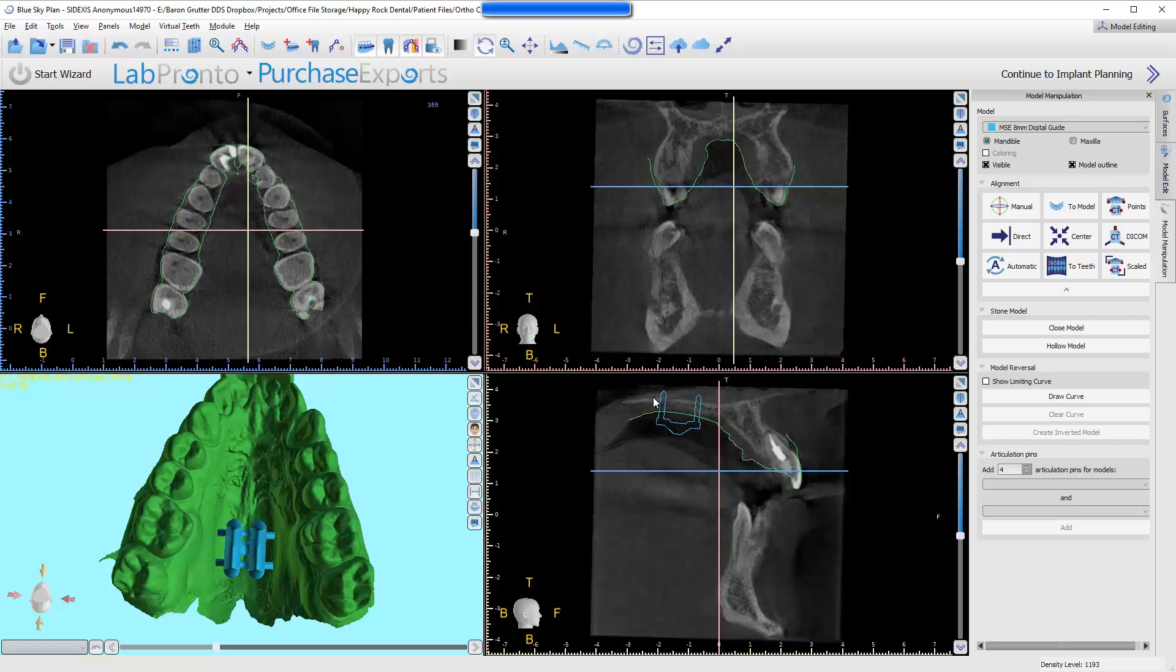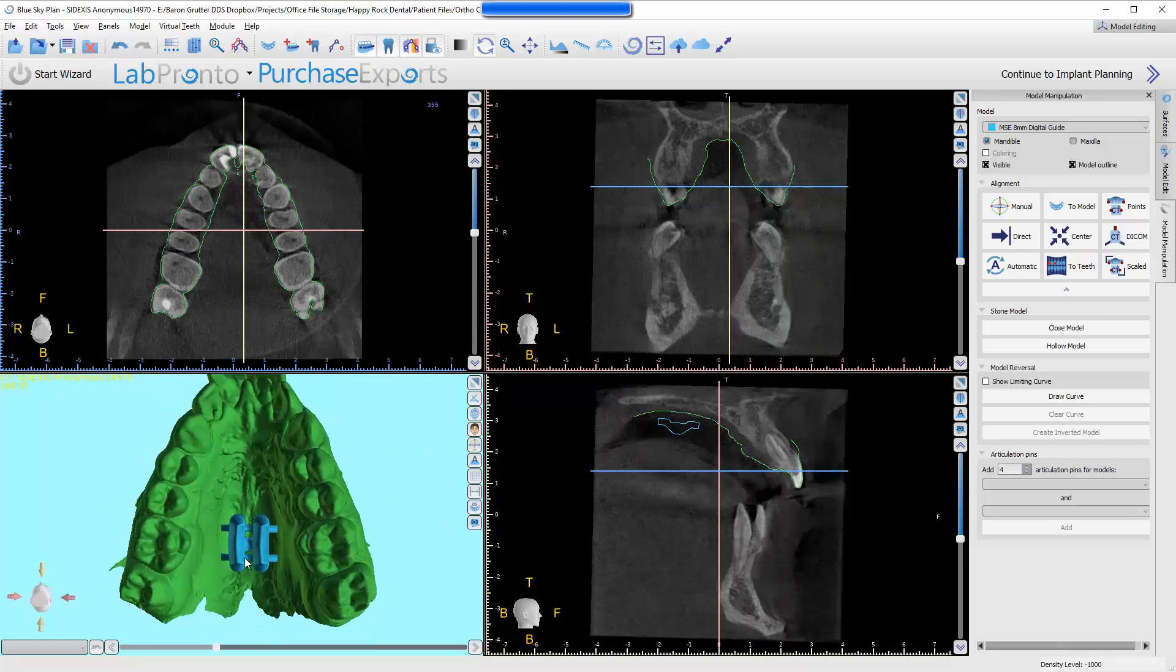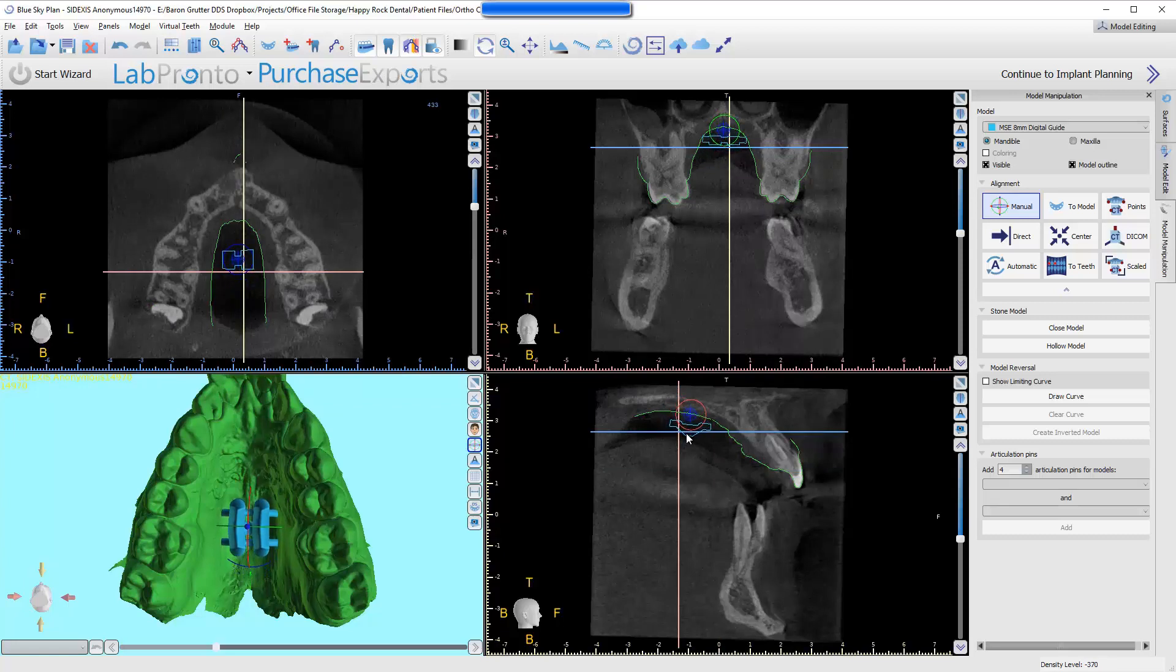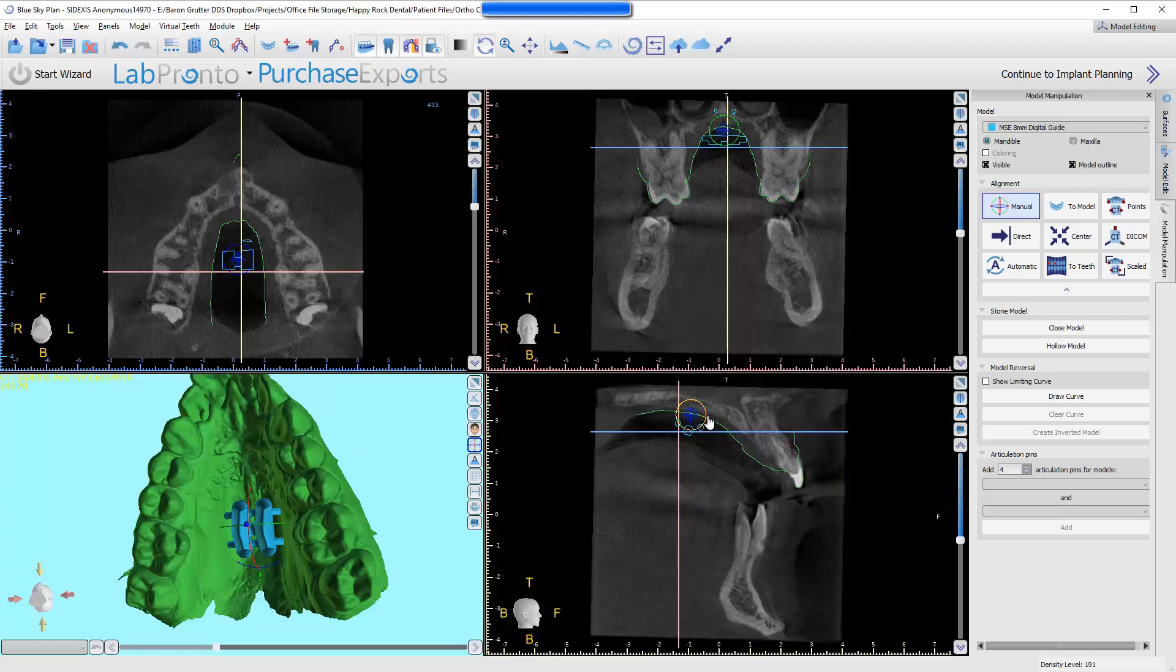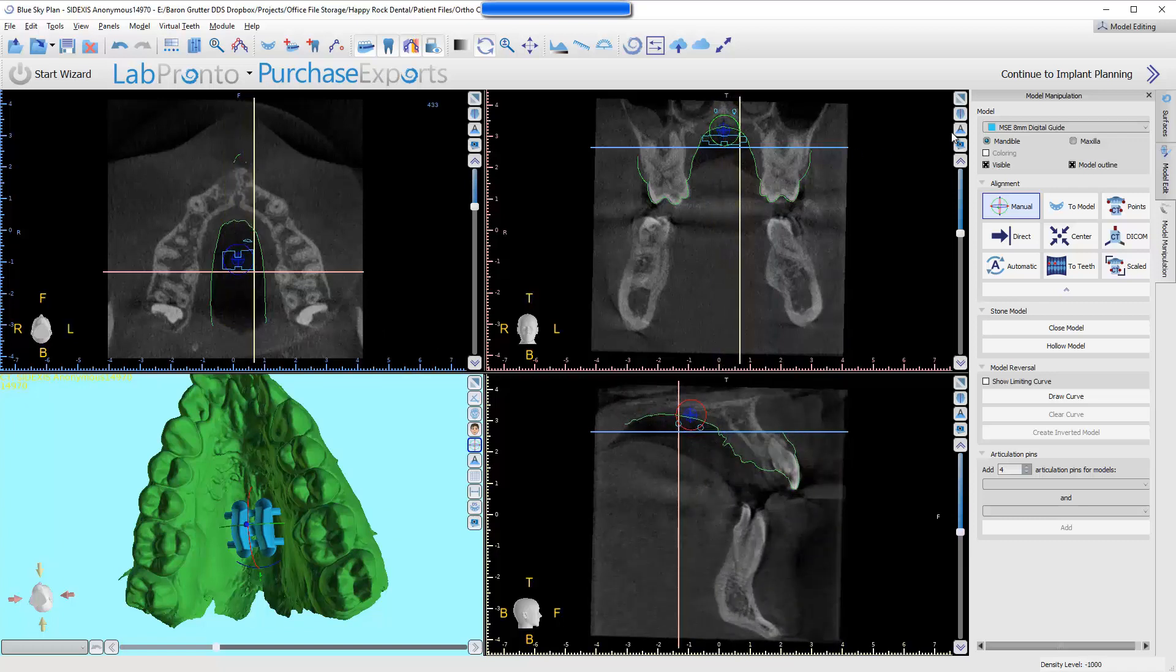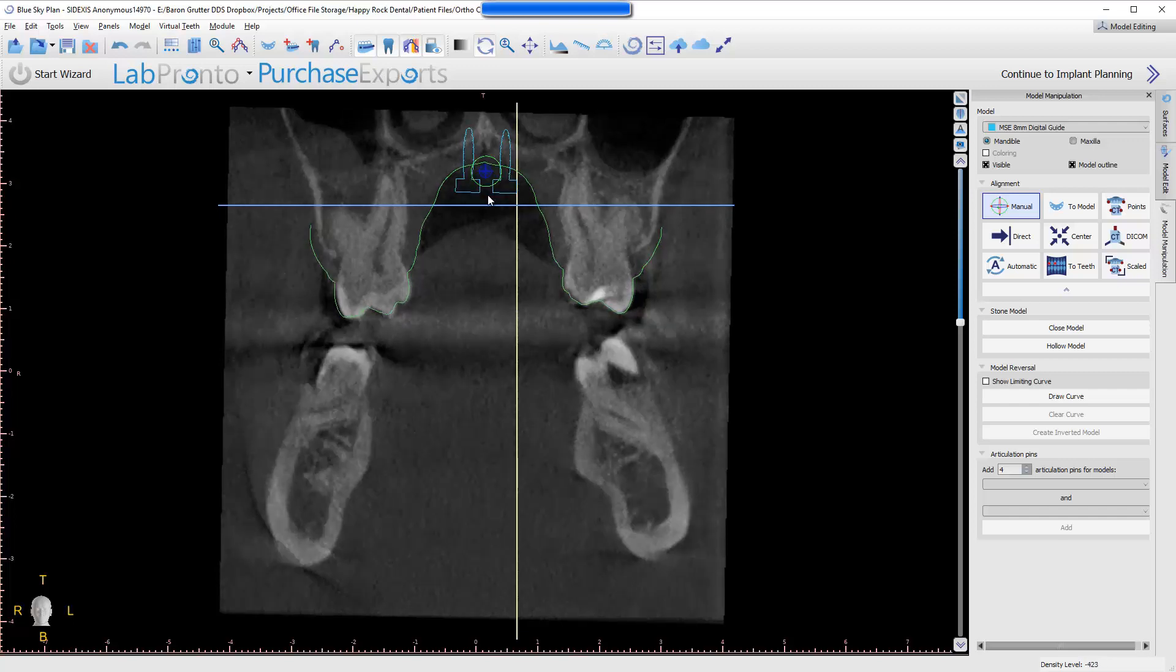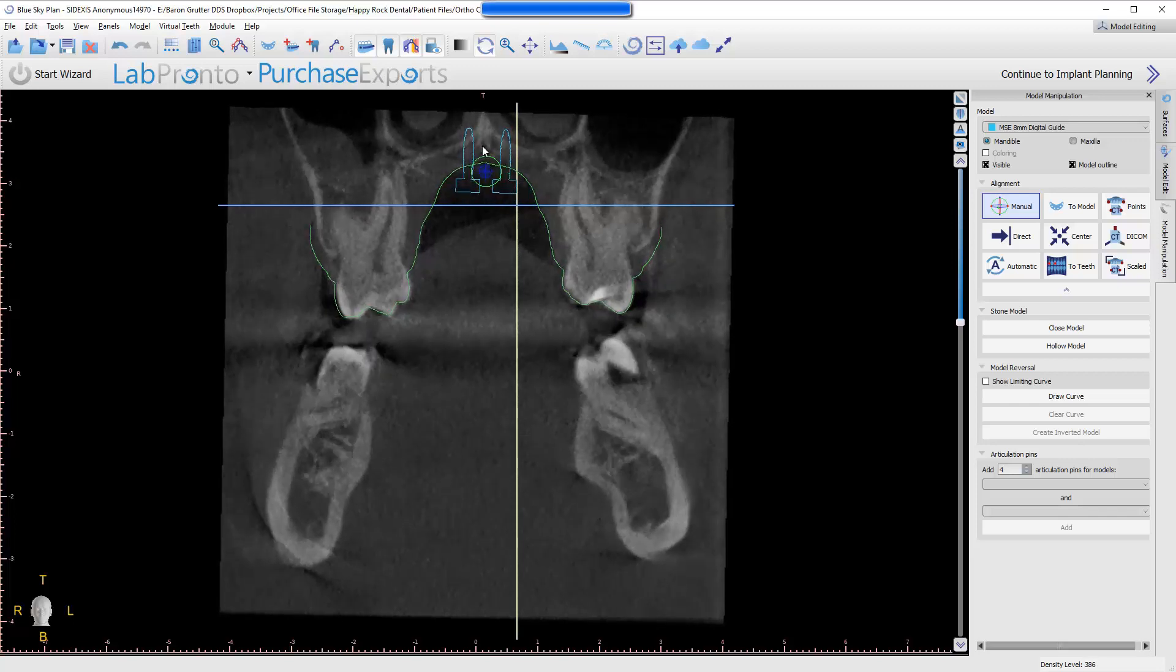Now you can decide, do I need to go farther forward to engage thicker bone? But, as we go forward, we will encounter the issue of it interfering with or getting narrower up front. I can grab the whole thing, and I can actually just use my arrow keys on my keyboard. I was just pushing to the right, making it slide to the right, and I'm just making it parallel, so that I know that my pins are going to be relatively aligned. I haven't gone too far forward, but I'm just on the mesial aspect of the first molars, maybe in a little bit thicker bone here.